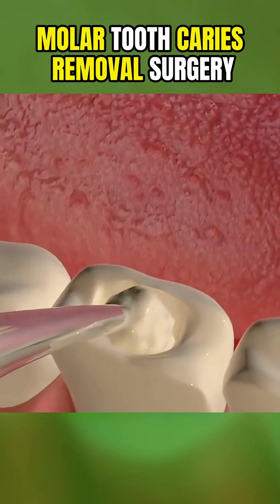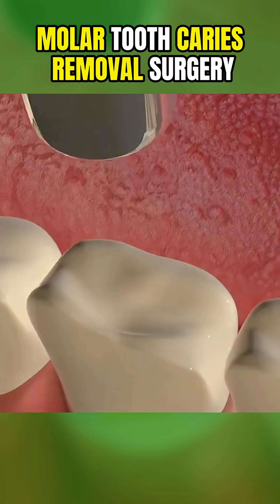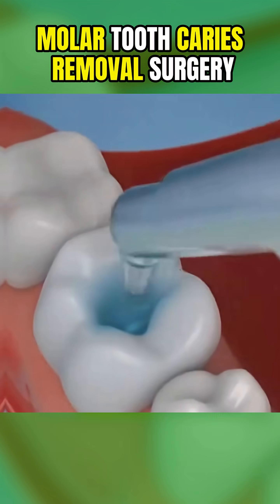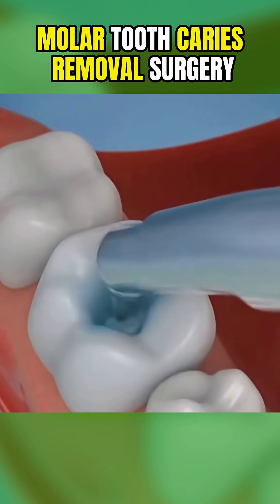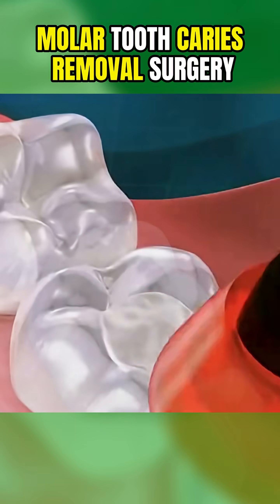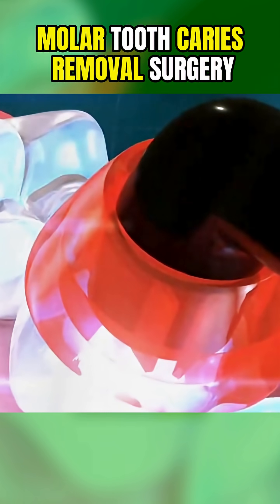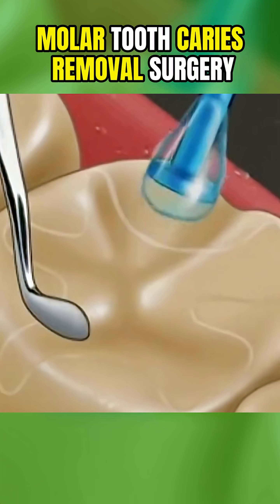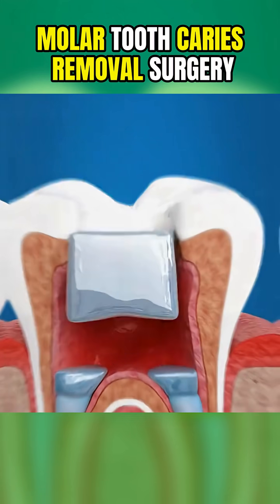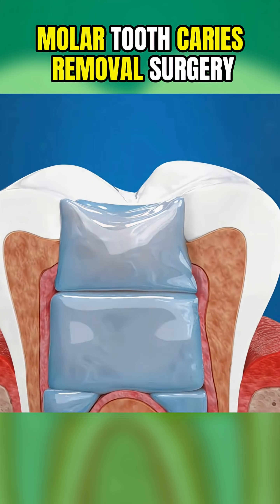Depending on the cavity's size and location, the dentist will choose a filling material. For smaller cavities, composite resin is used since it can be color-matched for a natural look. For larger cavities, a metal filling or porcelain inlay may be used for added durability.